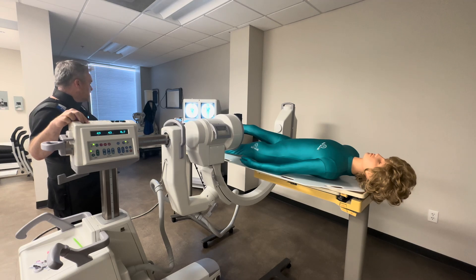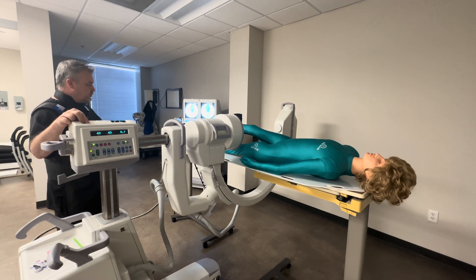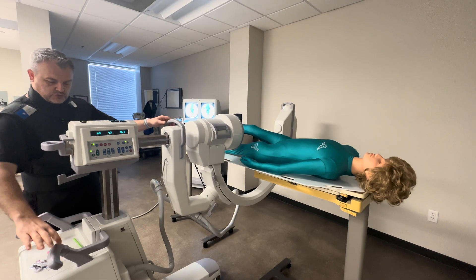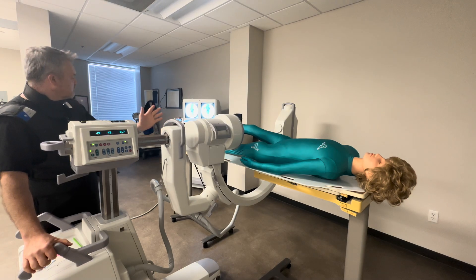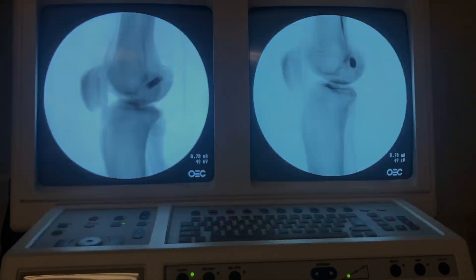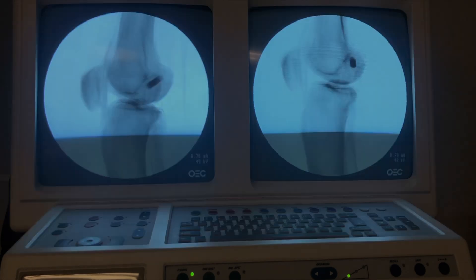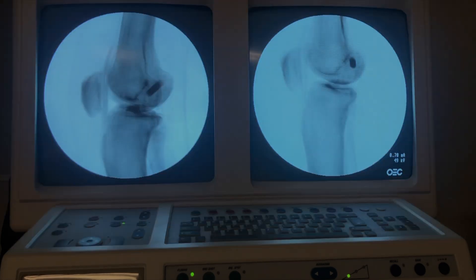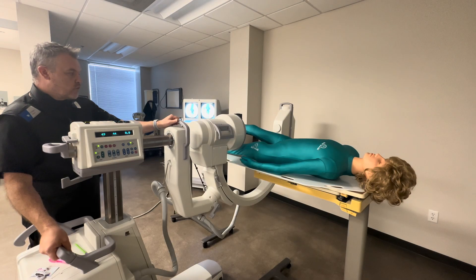Now we can look and see inferiorly and superiorly we have misalignment of those condyles. So that will be a wag issue. I'm going to go ahead and put a wag towards the feet — let me go with five degrees — and slide north to hopefully keep my joint centered. We can see those condyles have opened up more, so that correction was the wrong way.